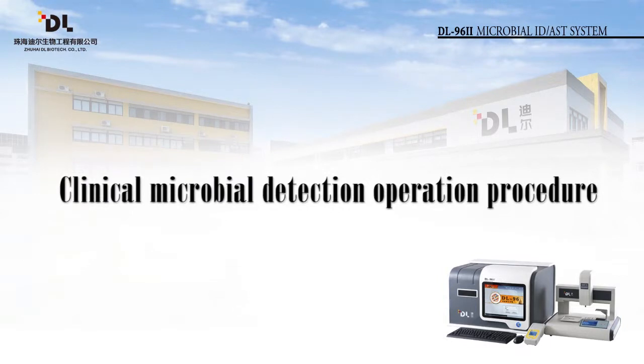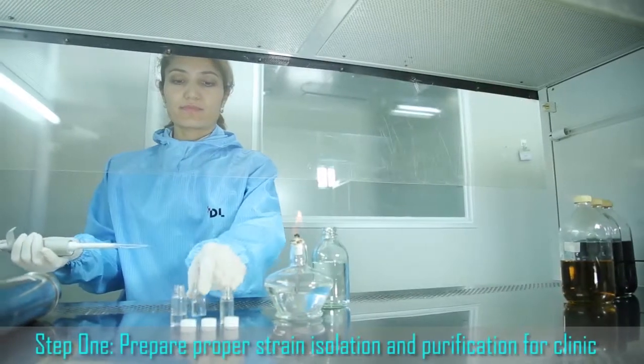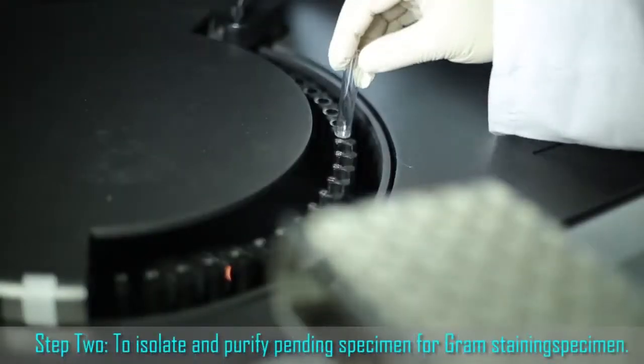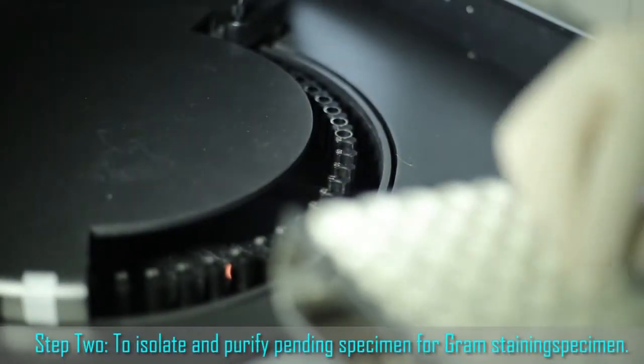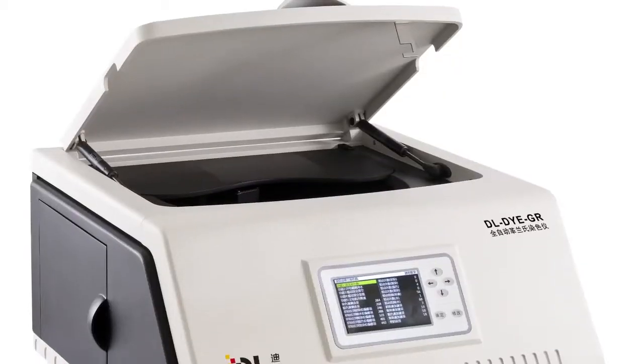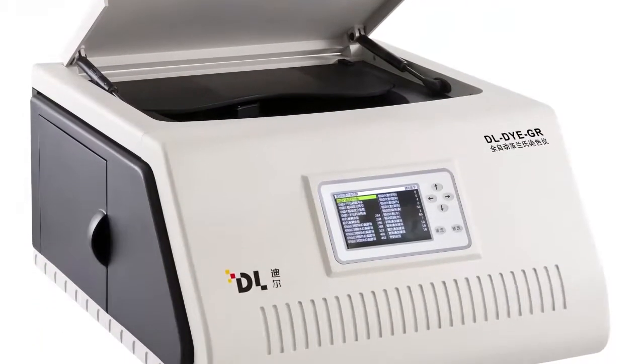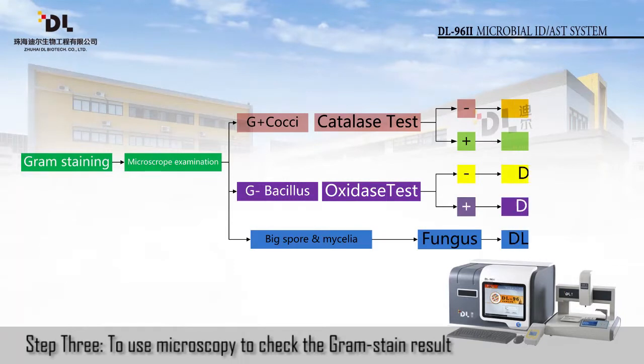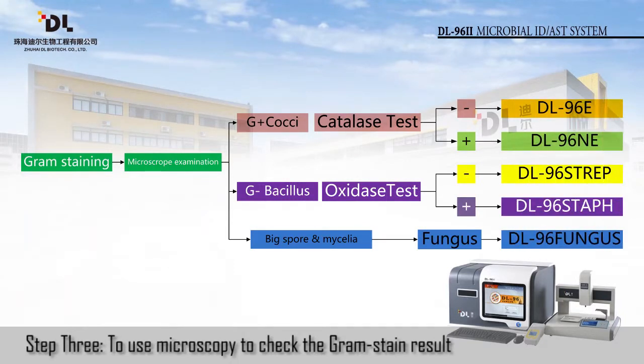Section 1. Clinical Microbial Detection Operation Procedure. Step 1. Prepare proper strain isolation and purification for the clinical specimen. Step 2. Isolate and purify the pending specimen for gram staining. Of course, the DLDYE autogram stainer can help you with this step. Step 3. Use microscopy to check the gram stain result. Then, do oxidase tests for gram-negative bacilli, and do catalase tests for gram-positive cocci. After that, the user can choose different IVD test cards in accordance with different results.